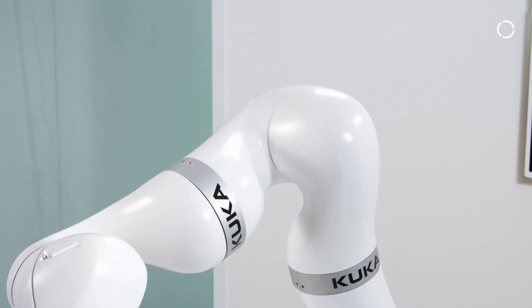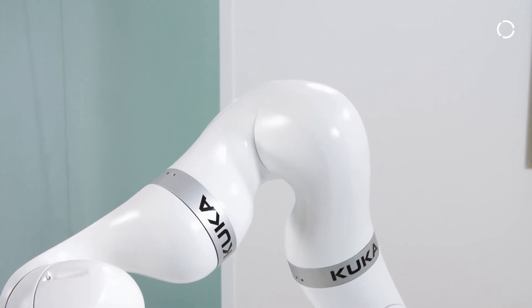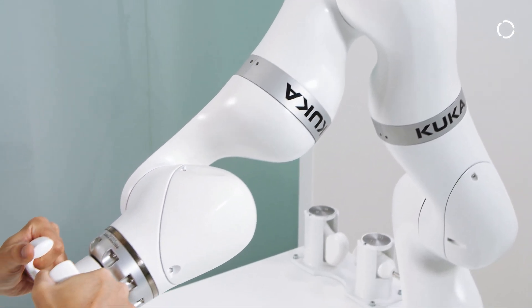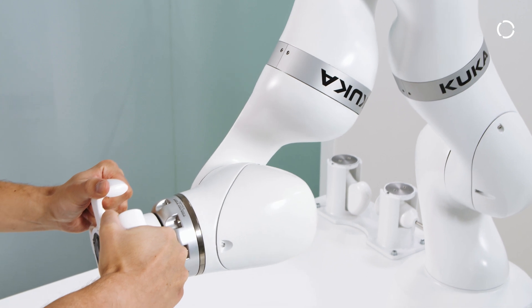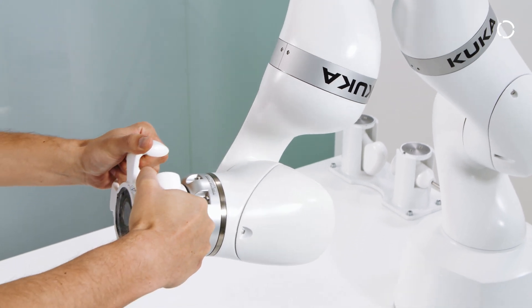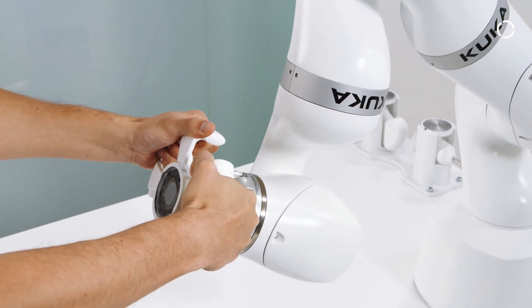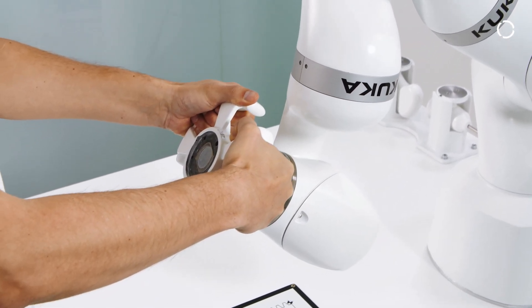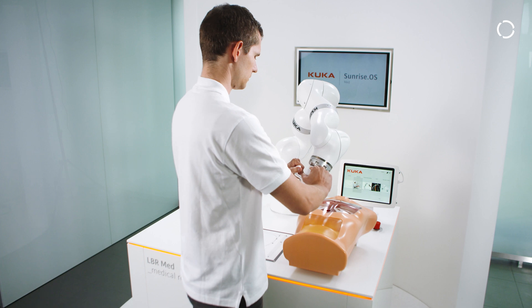Additionally, the programming interface allows the customization of the hand guiding motion, for example with joint specific limits or Cartesian velocity limits.